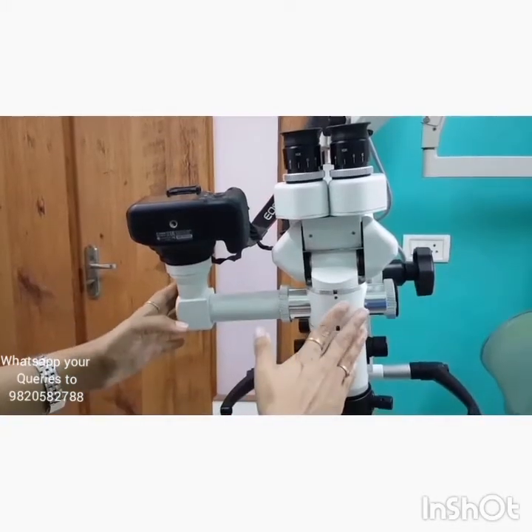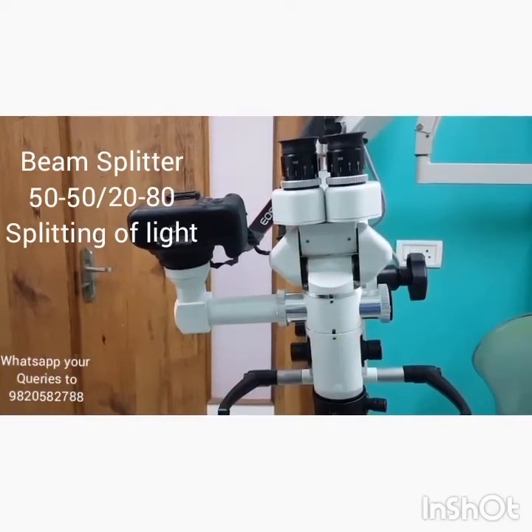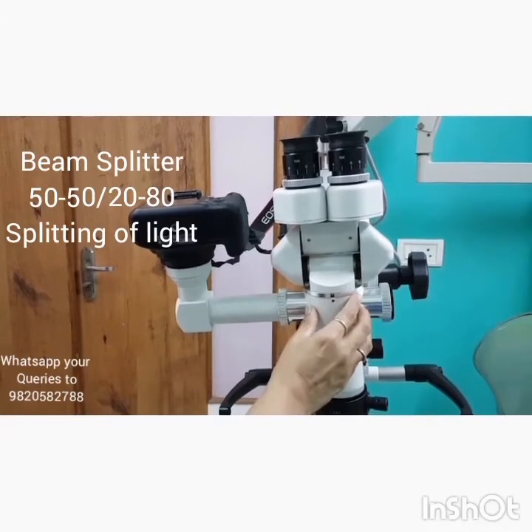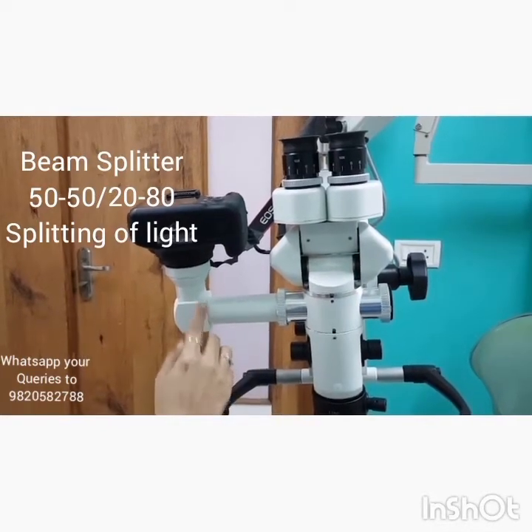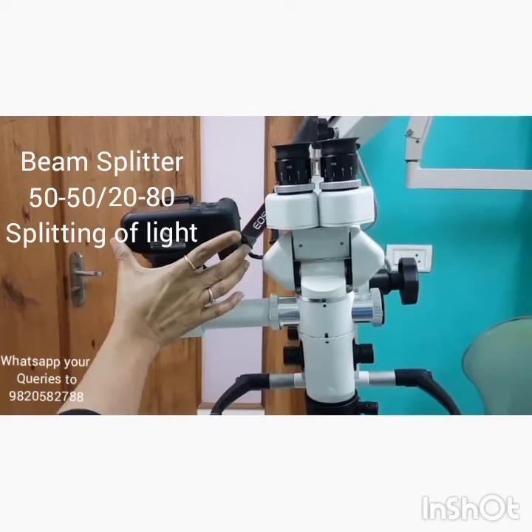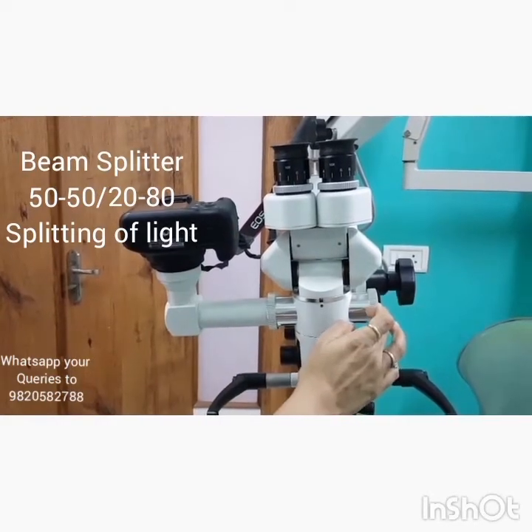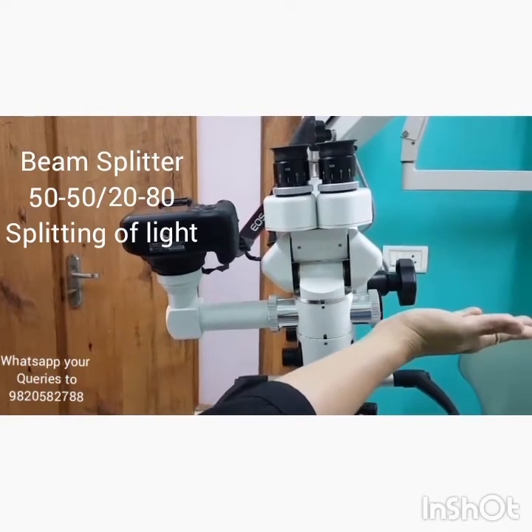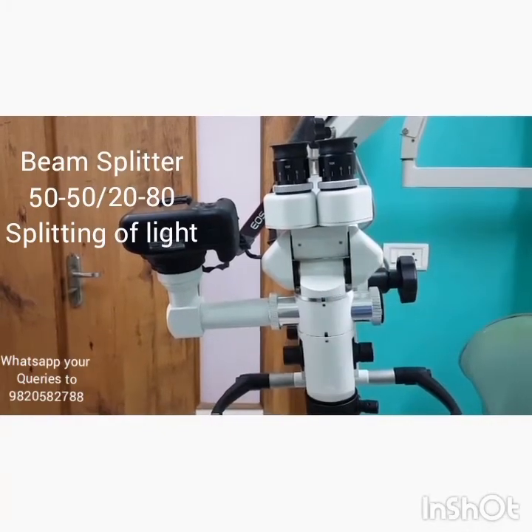Another important component is the beam splitter. The beam splitter splits the beam of light, allowing an additional provision for a digital camera and another provision for an assistant's head to be attached to the microscope.